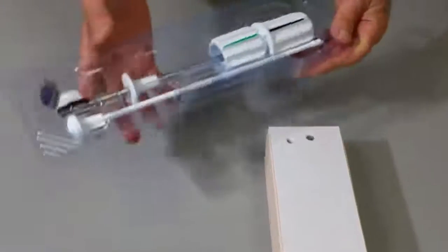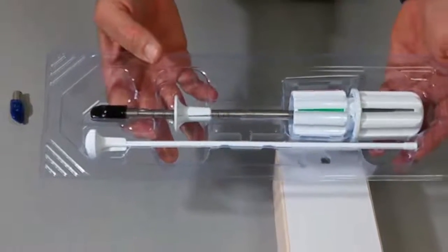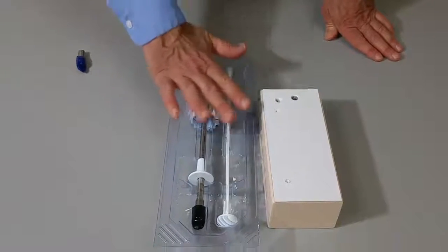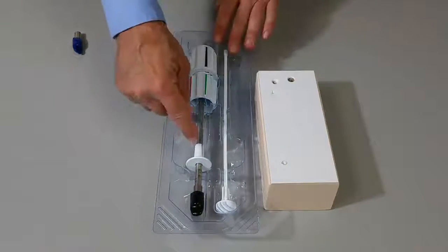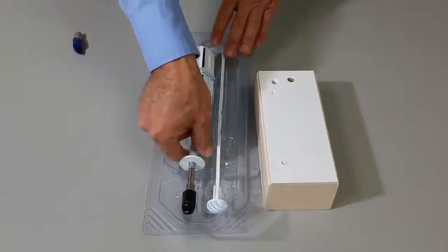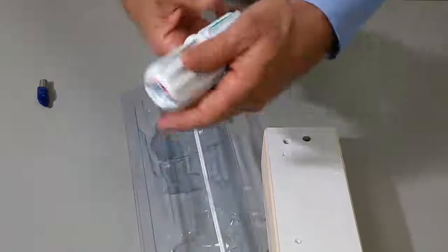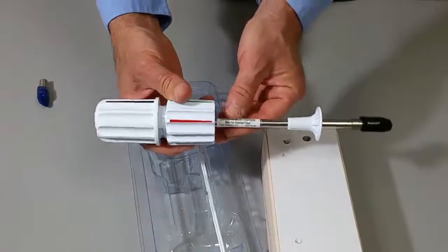The purpose of this video is to introduce the viewer to the Corex Autologous Bone Harvesting Instrument, which comes in a single patient use, disposable form. It normally would have a Tyvek peel pack that would cover the receptacle in which the device is housed. After the peel pack has been removed, the device is delivered from the sterile container. In this sample unit we have labeling, but obviously in the surgical units there would not be such labeling.